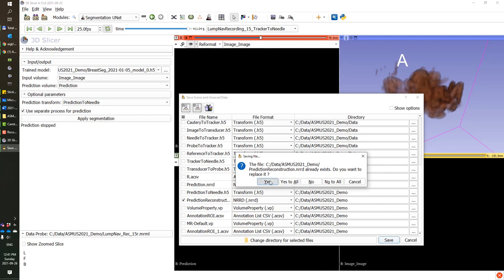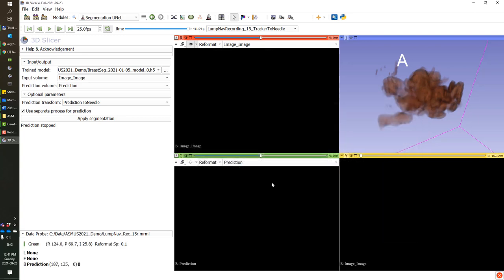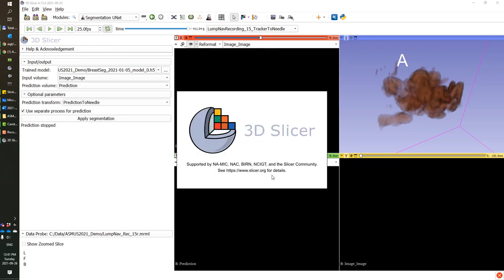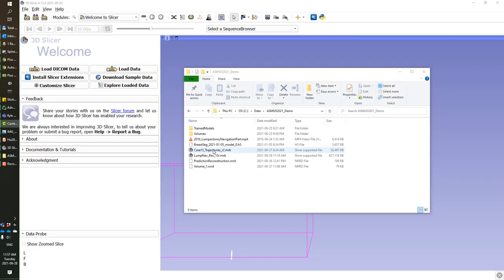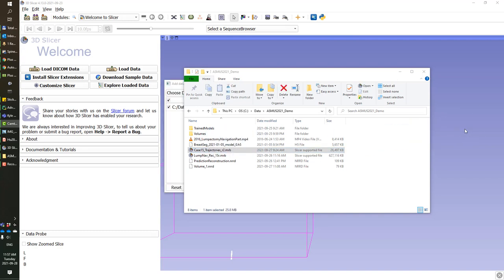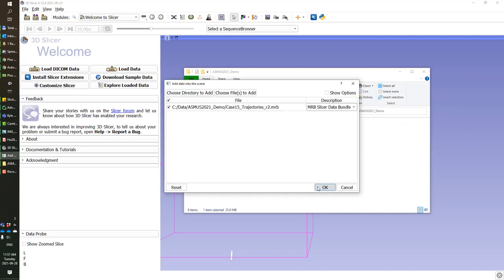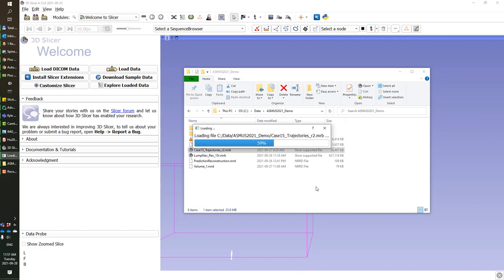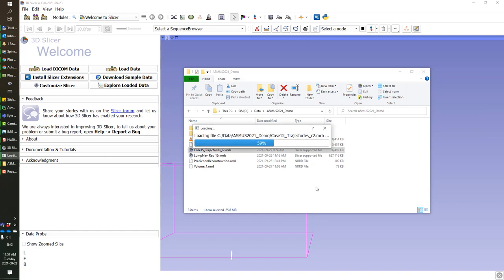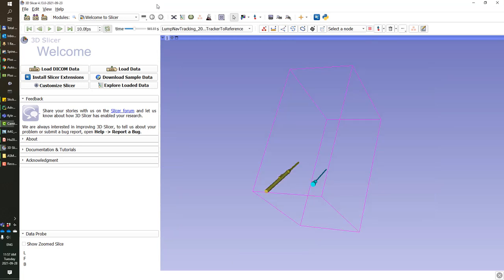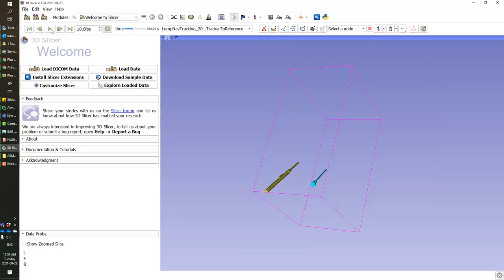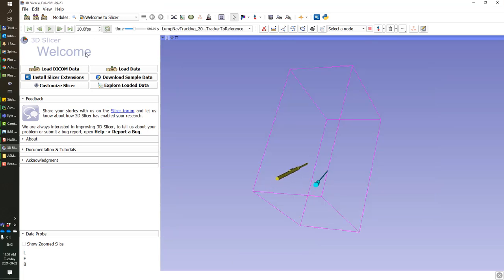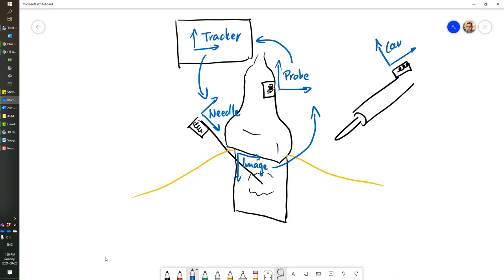Of course, if we design a specific module for the surgical navigation scenario, then this volume would be sent to the navigation module automatically. Now I'm loading the trajectories. This is a time series that happened 10 to 15 minutes after the ultrasound scan, when the surgeon was already operating on the tumor. You can see that the cutting device is moving. So now we add an additional tool to our configuration, and that's the cautery, the surgical cutting device.